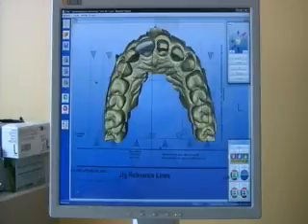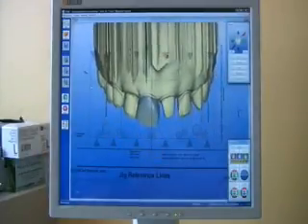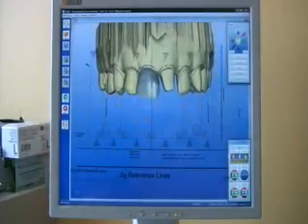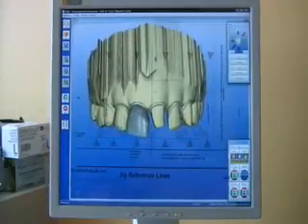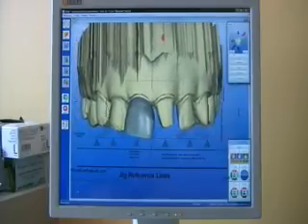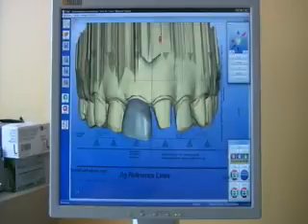Once the software has given us our biogeneric proposal, we will rotate the virtual model and align it with the lines on the anterior overlay. You can see how it has a distal tilt, which is an unnatural tilt. We want all the anterior teeth pointing towards the core of the body.